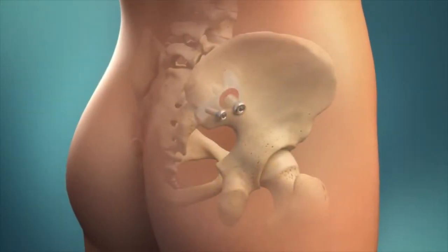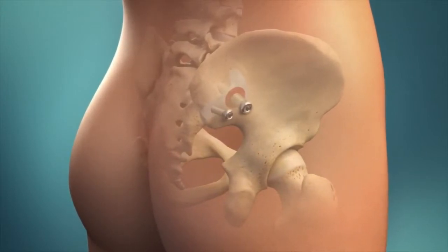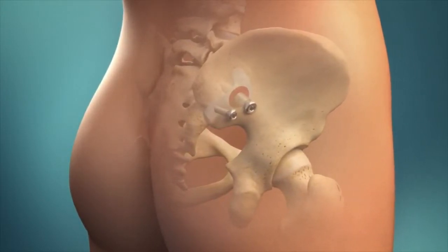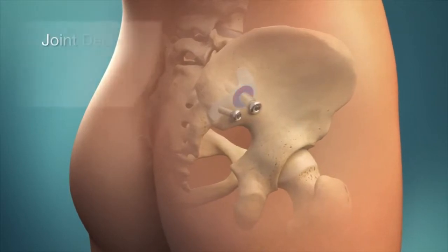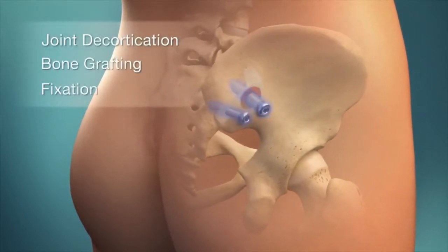The Symmetry sacroiliac joint fusion system is the minimally invasive surgical treatment founded on proven orthopedic principles of joint decortication, bone grafting, and fixation.